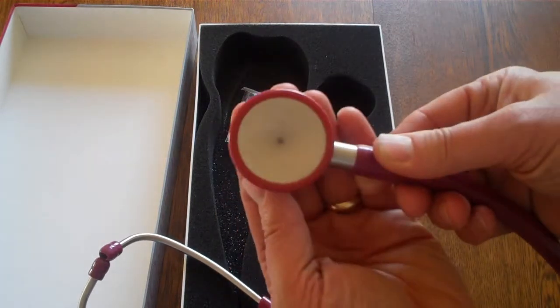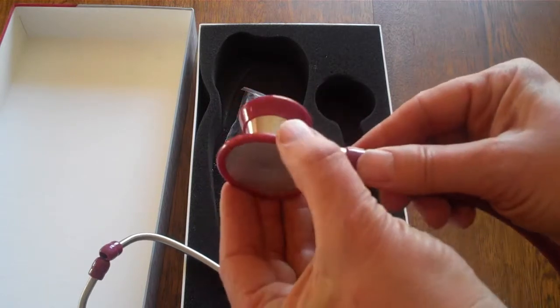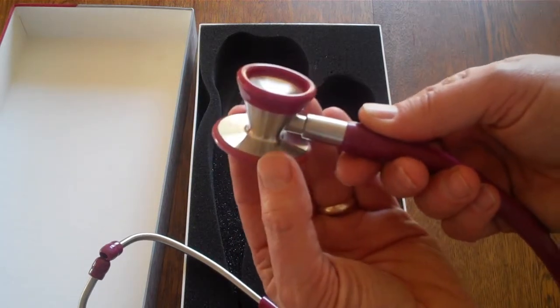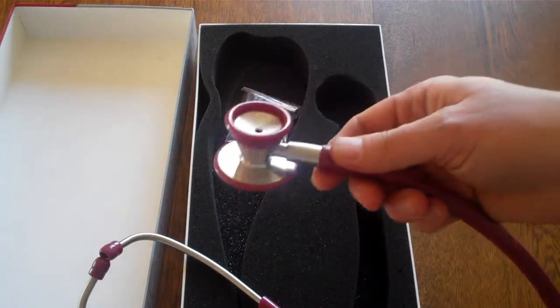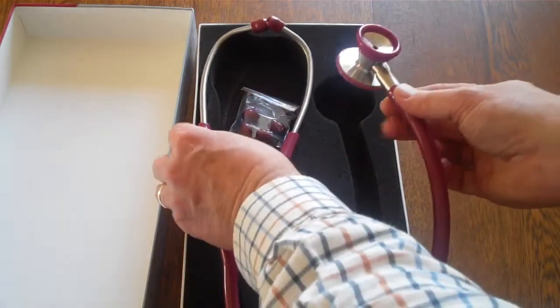The action is a simple rotation with lock to change from bell to diaphragm. The quality of the auscultation on these units is extremely good.